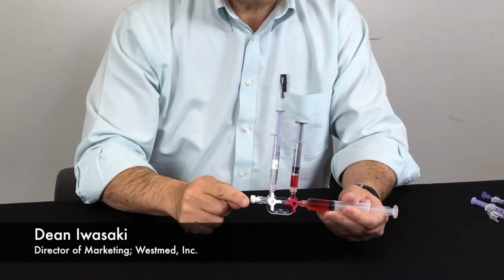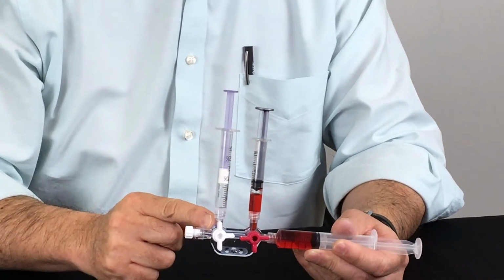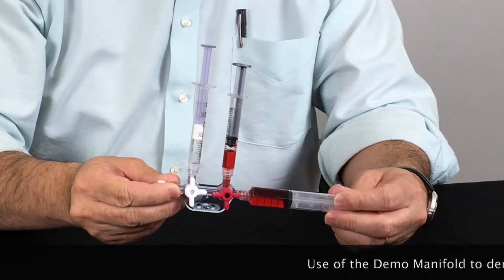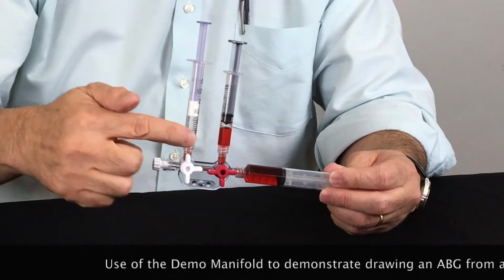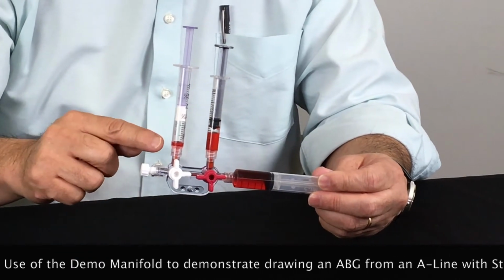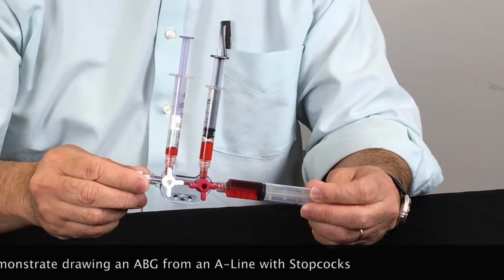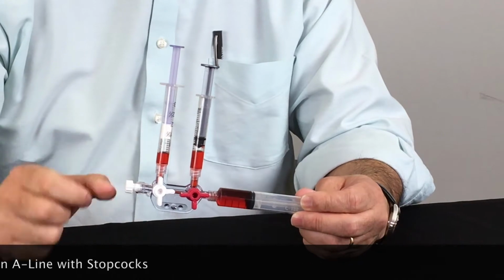This is attached in simulating how a blood sample would be drawn from an arterial line. And what I'm going to do now is push the reservoir syringe forward, and the aspirating syringe has been shut off. The venting syringe is now open. It is filling under arterial pressure. The air inside the syringe is now venting out.